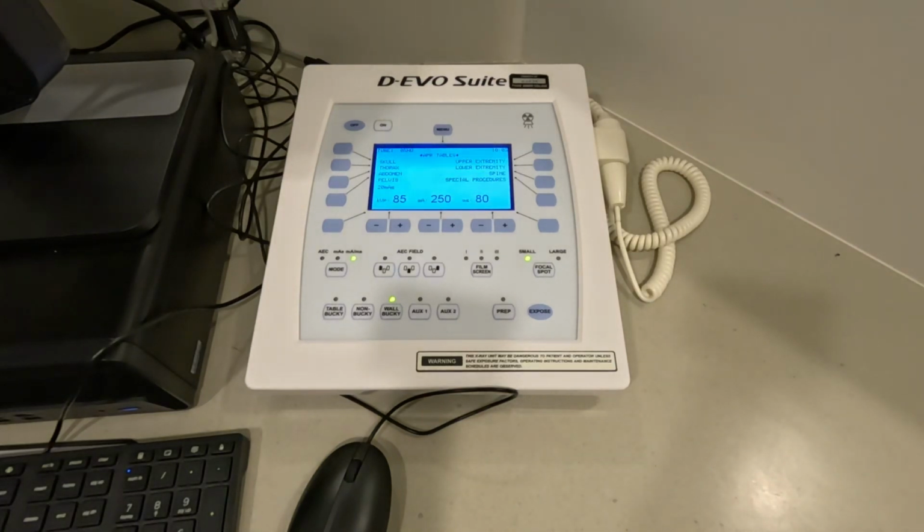If you are new to clinical education or you're about to start clinical education, this video is for you. What I'm going to talk about today is the control panel and what we use it for. Generally speaking, just in a short sentence, your control panel is where we control the quantity and quality of x-rays that we create and expose a patient to. There are some other things that we're going to cover on this, but those are the main two things.